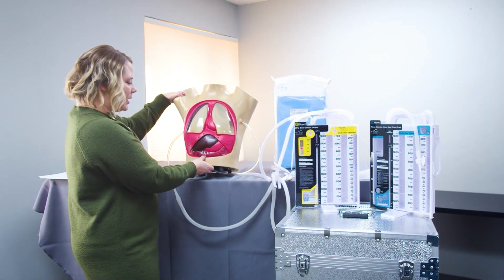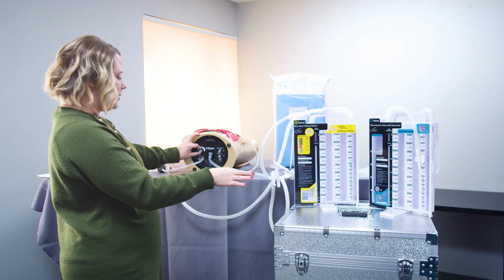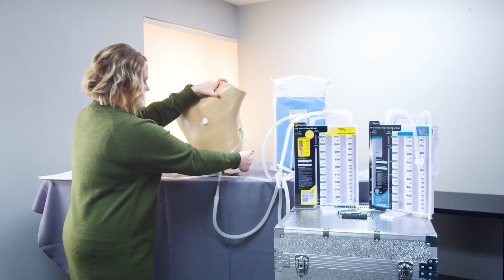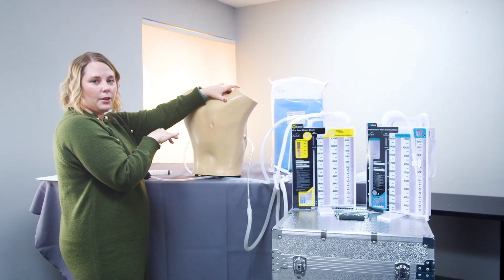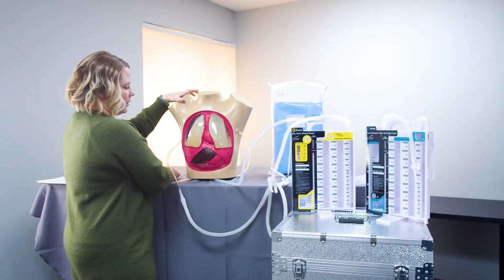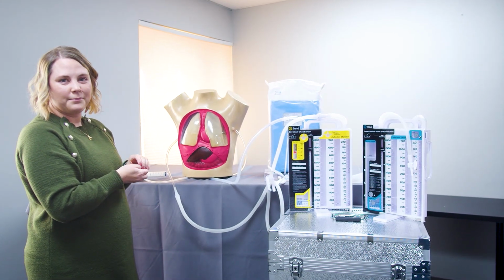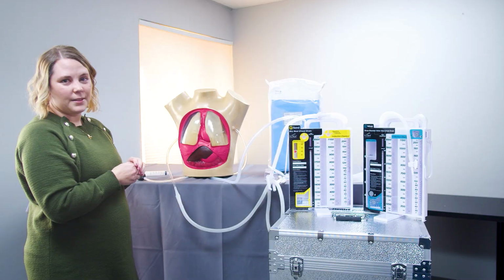For cleanup, it's really easy. We can continue to run the suction and drain out as much as possible into the drainage collection systems. But the other thing that's really great is that on the back side of our simulator, we have a little plug that can easily be removed to allow for a solution of bleach and water to go in and allow for this to air dry as you're done. And wiping this down with your bleach and water solutions or instilling any of that inside helps to keep this from getting any gummy stuff, mold growing, or things like that. So it will last you for many, many repeats of use.